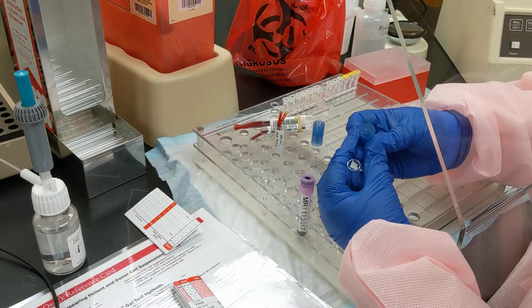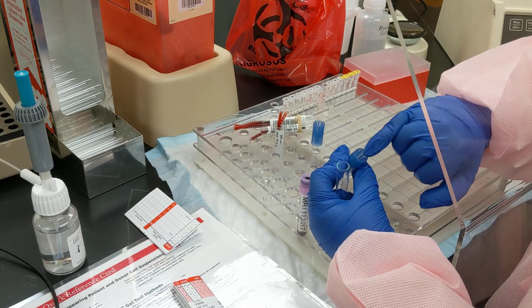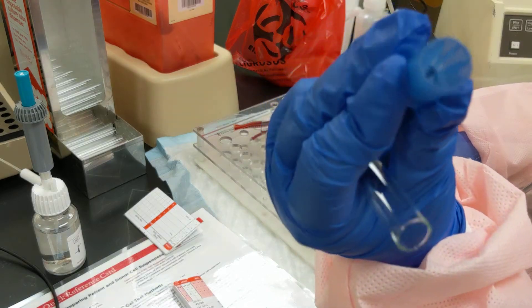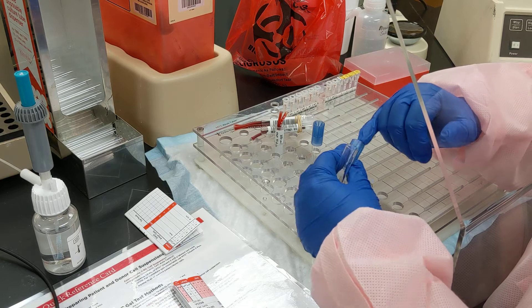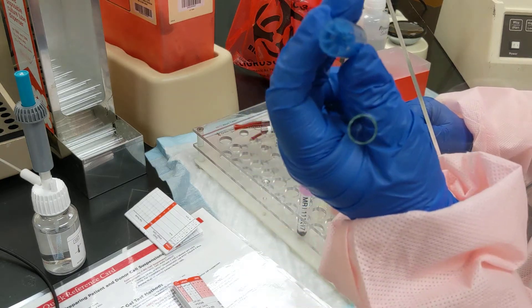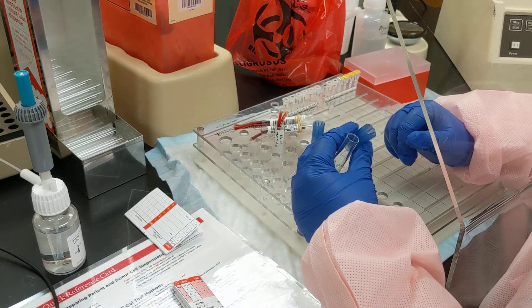It's a nice segment device. It has a blunt needle on this end, so you can't get hurt. And it has a sharp needle inside there, but it's designed so that adult fingers can't get in there. Lots of people have tried, including me right now. So you can't get hurt with these.